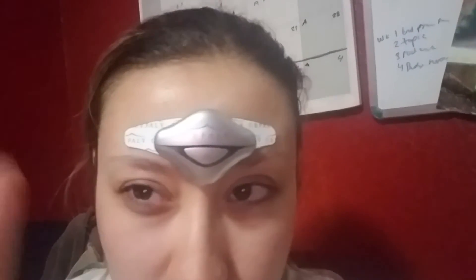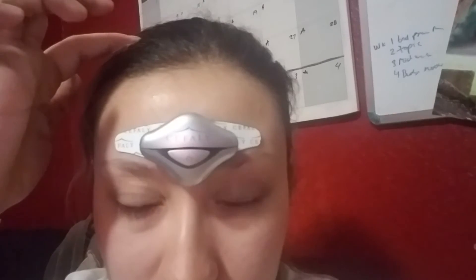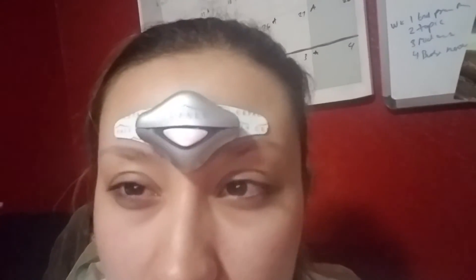A lot of it on my eyebrows, but mostly here. What's weird too is that if I touch here, it tingles over here — don't know why. But it's supposed to stay on for 20 minutes. I did already press it to stabilize it, which means it's going to stop at that intensity and continue the whole time. Tomorrow I may stop it before it gets to this point, because this is going to be a very long 20 minutes. But it doesn't hurt. It's just weird.